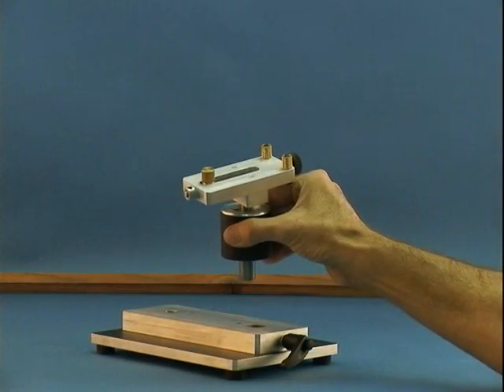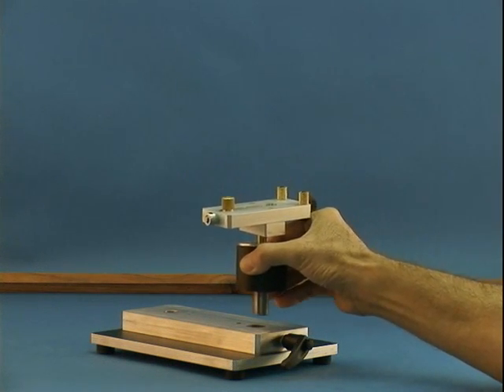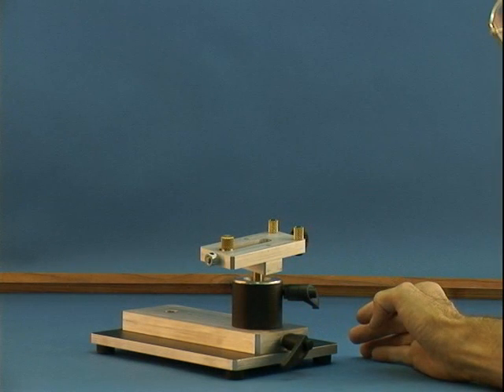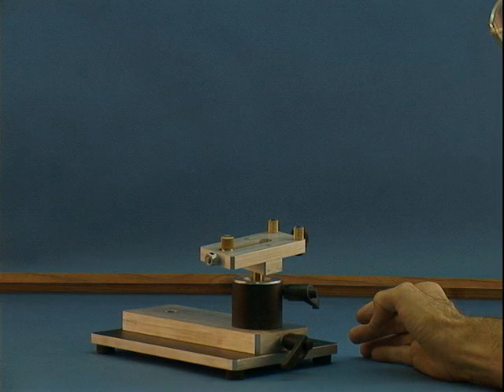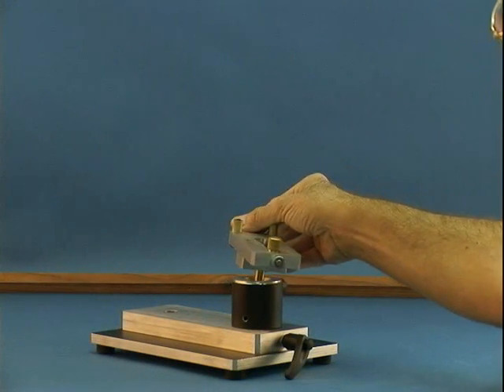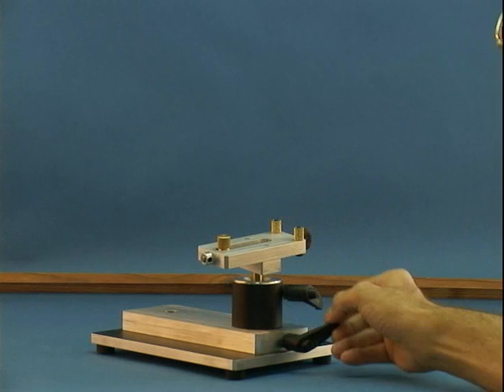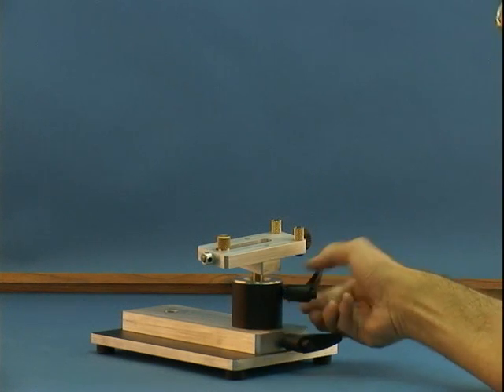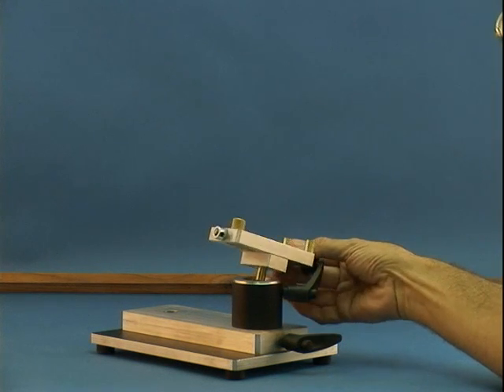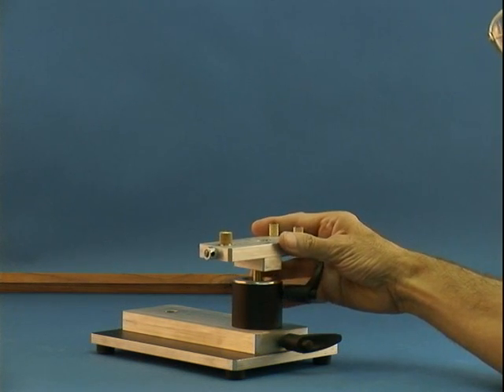This is the model tilting module and it can be easily installed. Quite a few years ago, we made an engineering decision to pursue the modular concept. Simply put, start with a base and add interchangeable modules to it, allowing configuration and reconfiguration over and over. If you bought an MX-5 based on your needs at that time and now have a call for more sophisticated milling procedures, you don't have to buy a new milling machine. You just upgrade with the module components that give you the capabilities that you require.